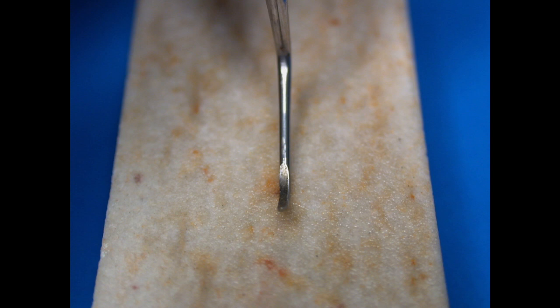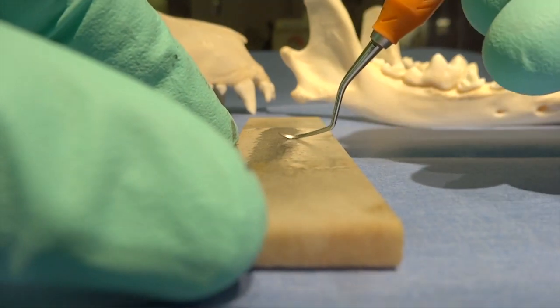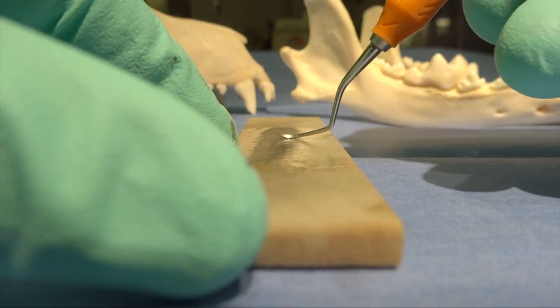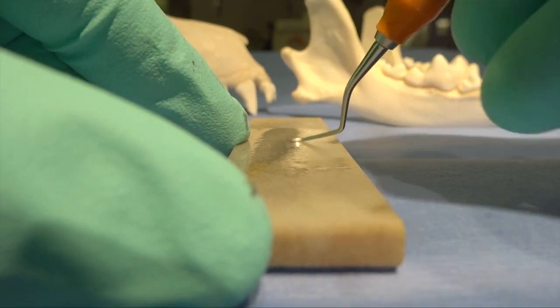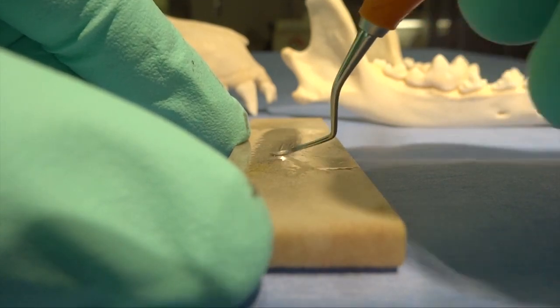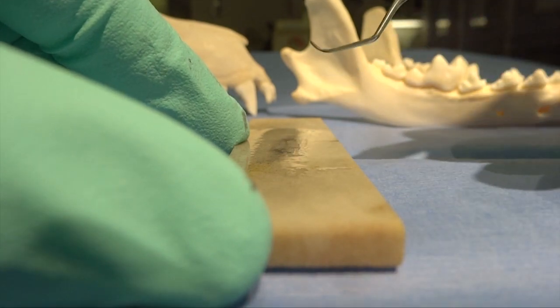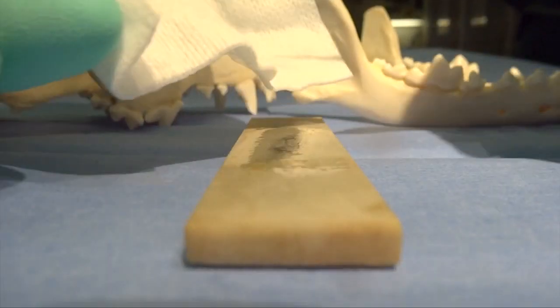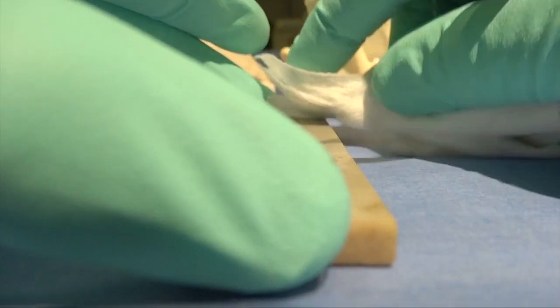If you look on the left side, you'll notice it's a little bit closer to the stone, and that's the side that cuts. So when we orient that onto the sharpening stone, that cutting side is right on that sharpening stone. We want to close that gap between the sharp edge and the stone itself, and once we do that, we've got the correct angle and we can continue with sharpening.